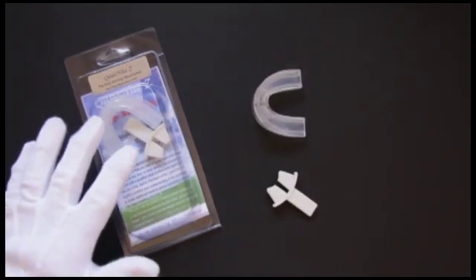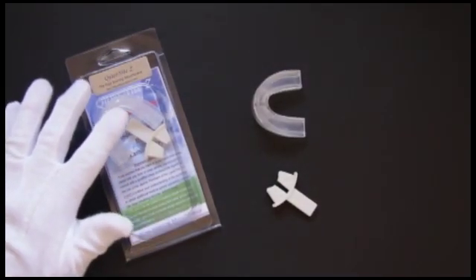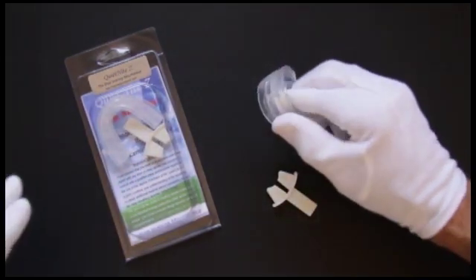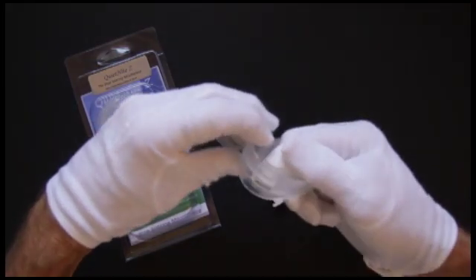The QuietNightZ comes in this package which contains a mouthpiece and fitting instructions. The QuietNightZ is a boil-and-bite mouthpiece that you fit yourself.